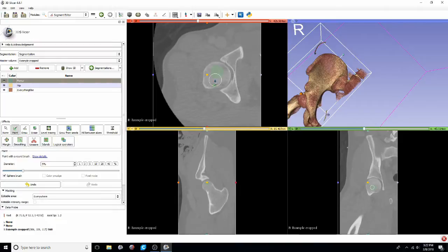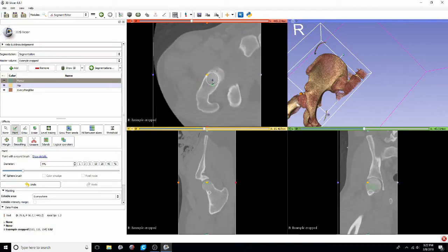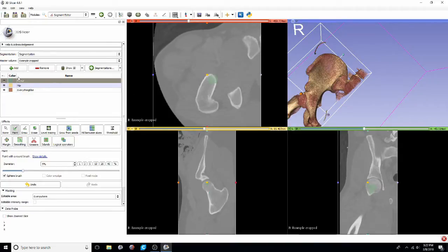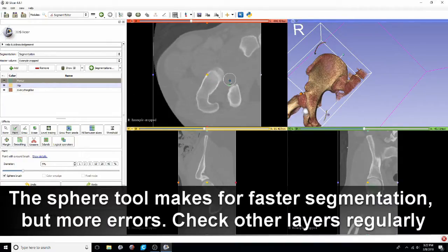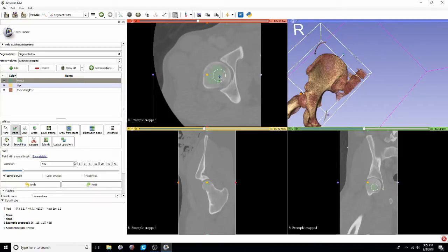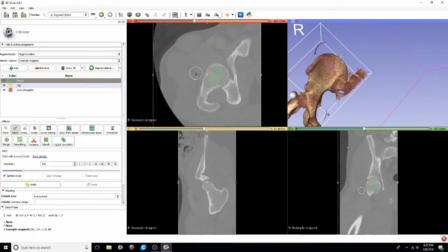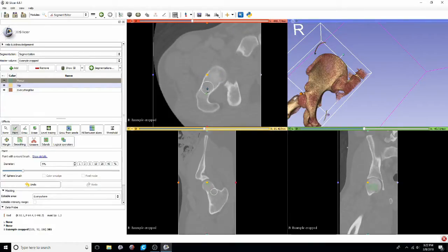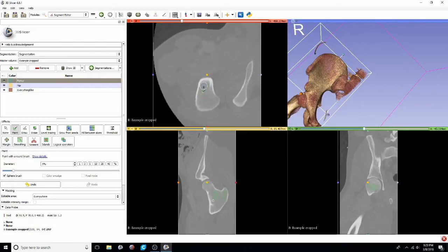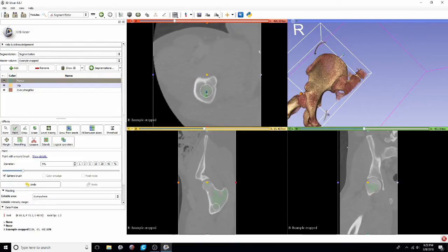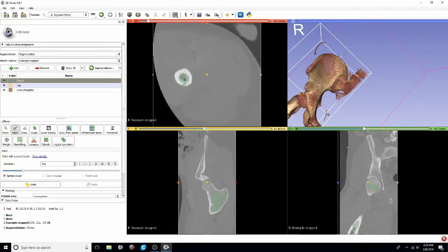you will sometimes label things that aren't actually part of the structure of interest just because you can't really see it. As you can see in the 3D model window, you can see a sphere that represents the paint brush, but it's kind of cumbersome to constantly be scrolling through it and ensuring that you're going to be included in the bone. So I think just using a slightly smaller sphere is the much safer move.